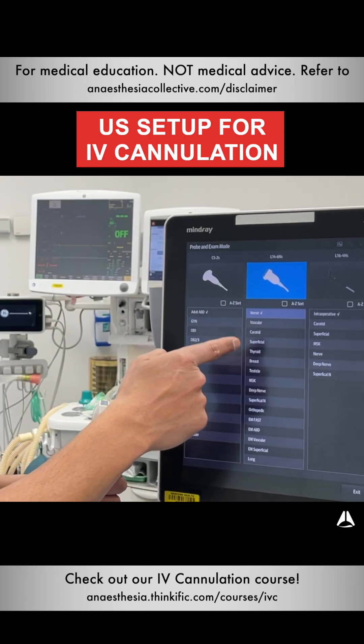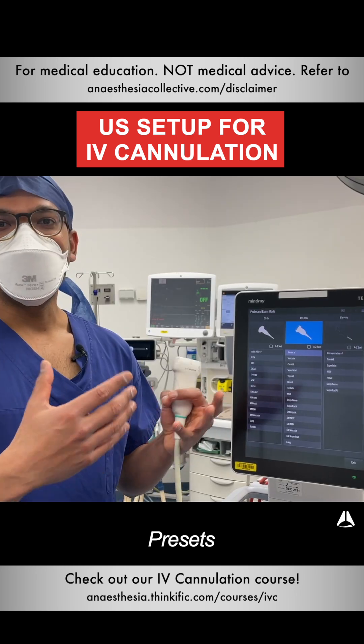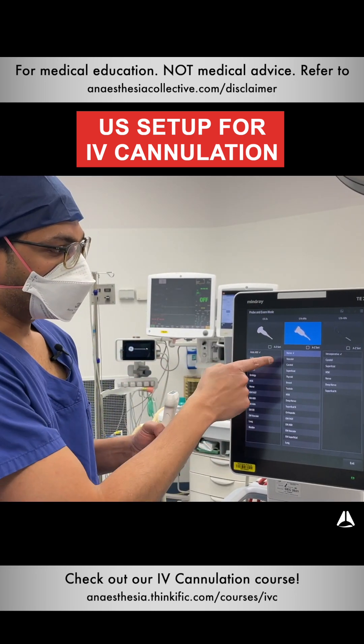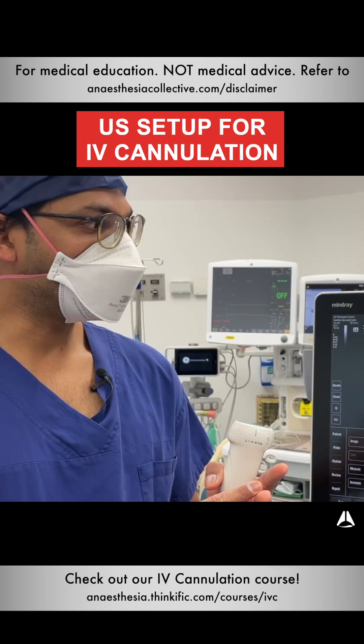The next part is presets. These presets represent a preset algorithm to optimize your picture for whatever you need — whether it's nerve or anything else — it will optimize that image.